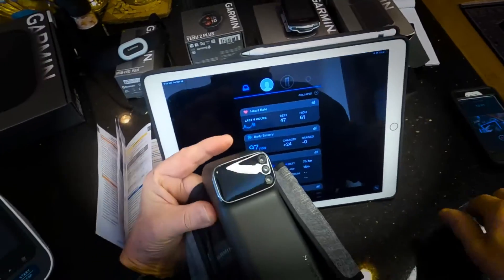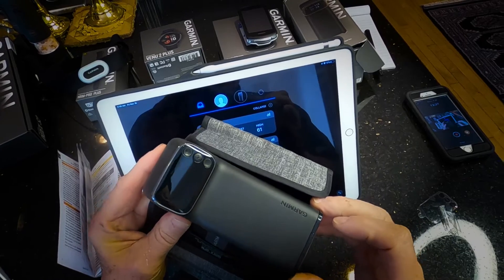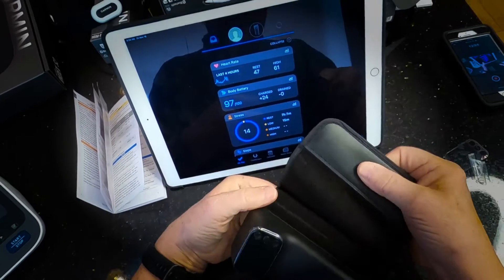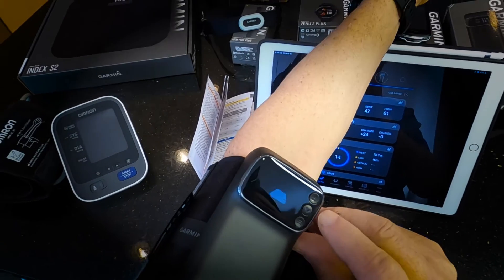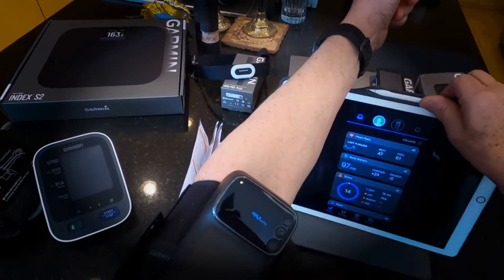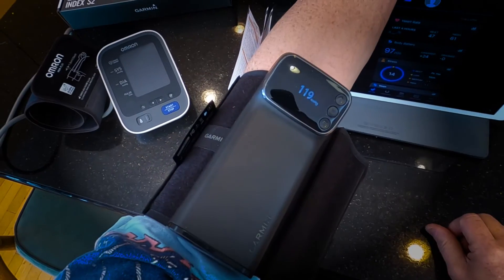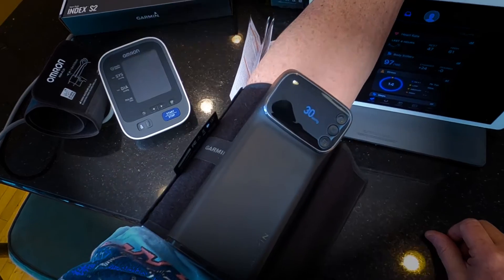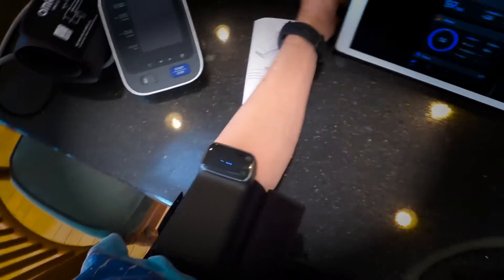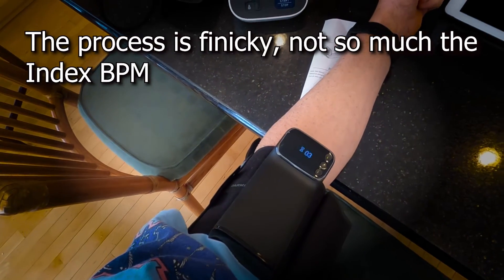I'm going to take this off. There's a protection here and a little thing I pulled out — there's a battery in here. So I have this thing set to my arm, pressing this button here. Three hearts show up. Now I shouldn't be taking my blood pressure with my arm held up like this — it's above my heart. I'm sitting with my legs crossed. The only thing else I could be doing wrong is walking around or running. Put my arm on the table like I'm supposed to.